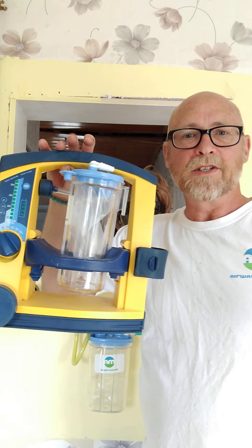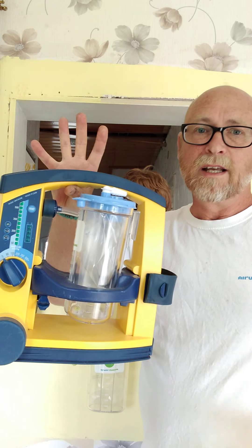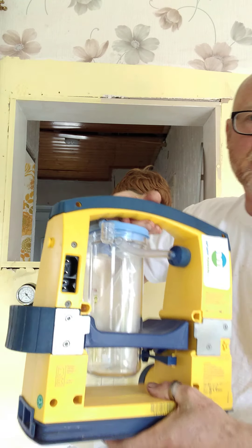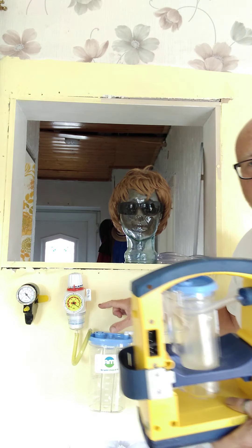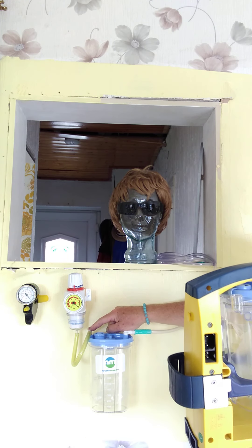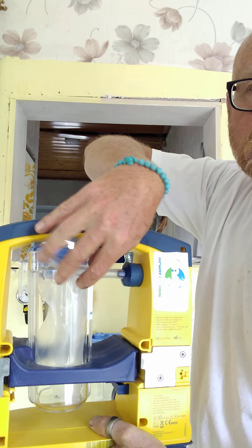Now, I've forgotten to plug this in, so it's not working. What do I do now? Also, if it was working — if I flip this round — there's a connector missing off the back of here. Not immediately obvious. I don't know if you can see down here, there's a yellow tube connected to a grey connector on the back of the canister. It's missing on this one, so this device is rendered completely useless now.